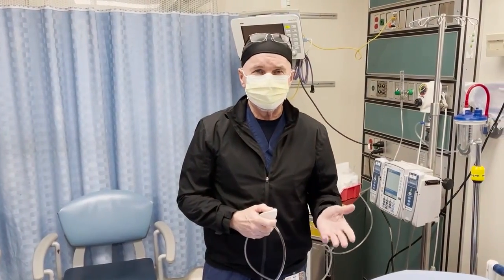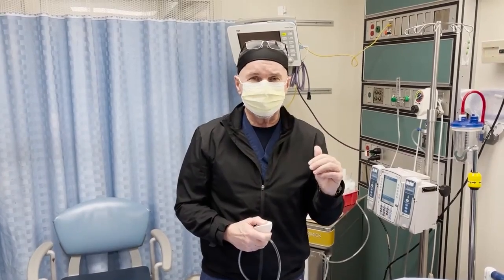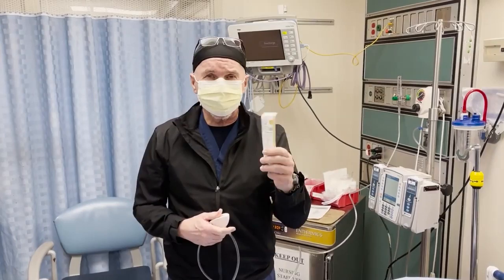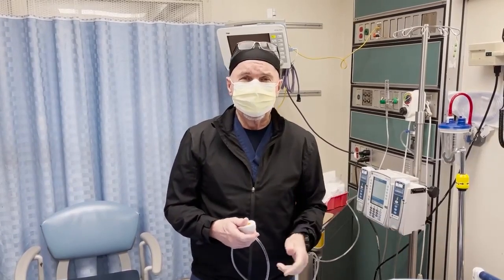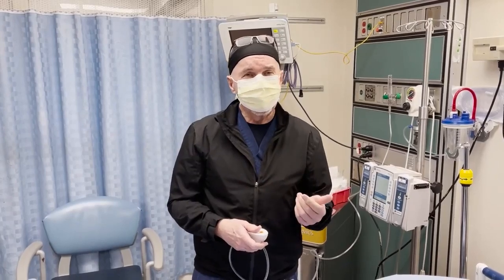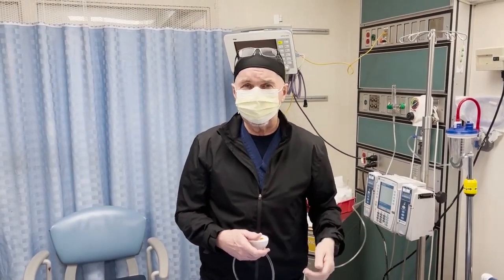So why would you want to suck the air out? Let's say a kid has inhaled a hot dog — complete airway obstruction — and now you're ventilating with a 14-gauge catheter through the cricothyroid membrane. Where's that air going to go? It's just going to cause barotrauma, just build up in the lungs. So passively removing the air is okay, but you have to wait about five or six seconds to let the air out.